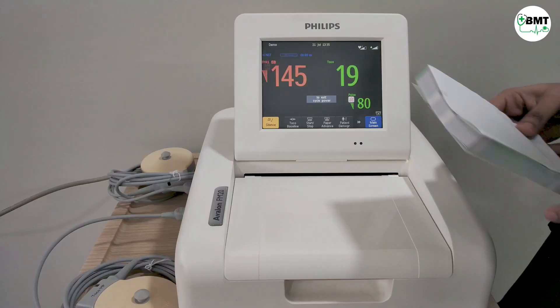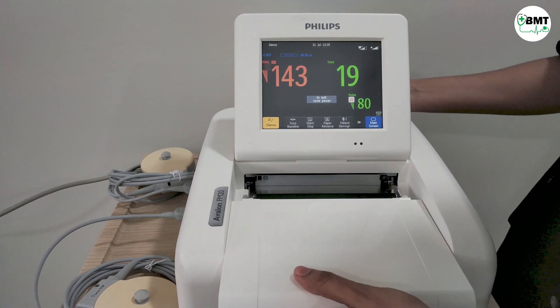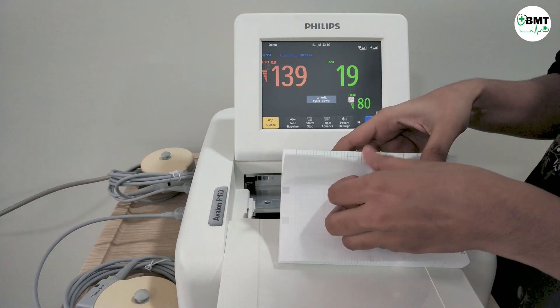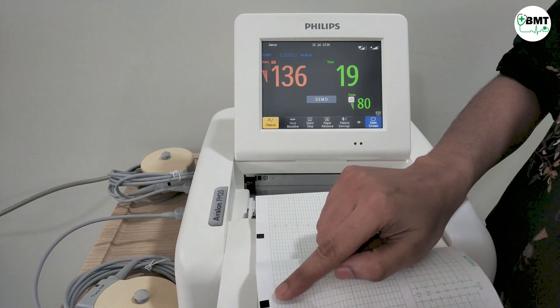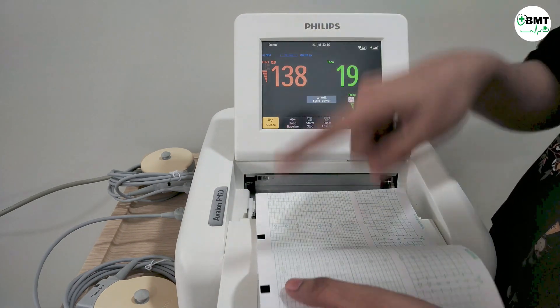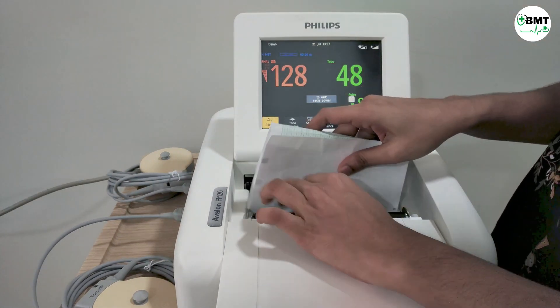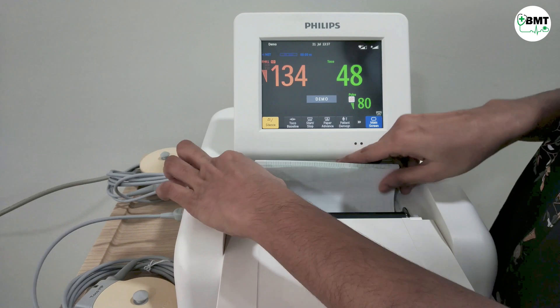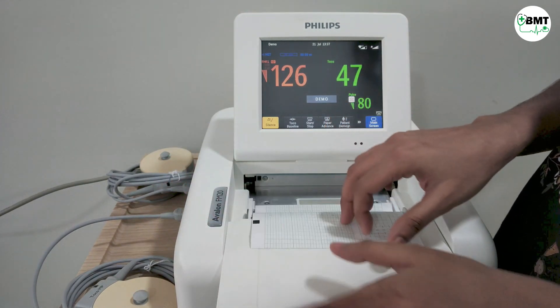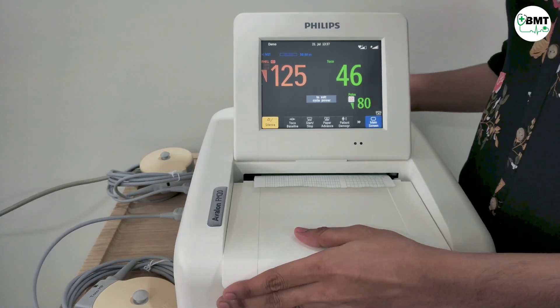This is the printer paper. Pull and open it. You can see the black notch — this black mark and the notch should be on the same side. Insert the paper, then pull some paper outside and close the compartment.